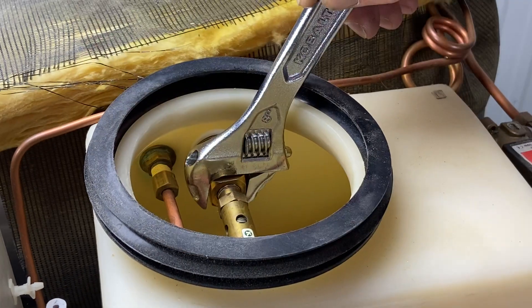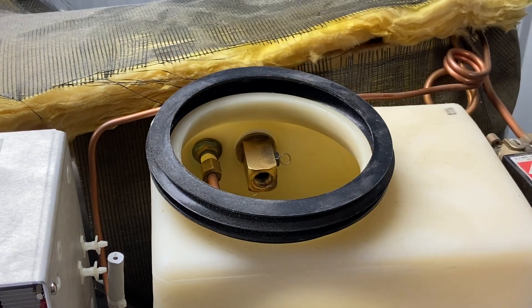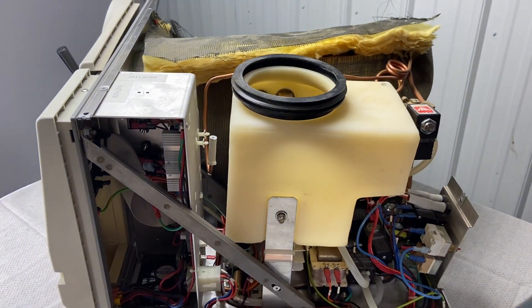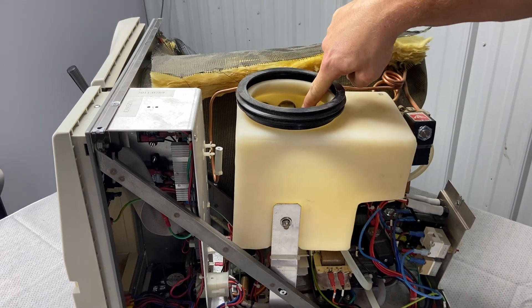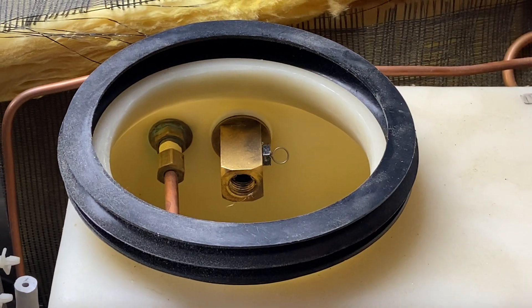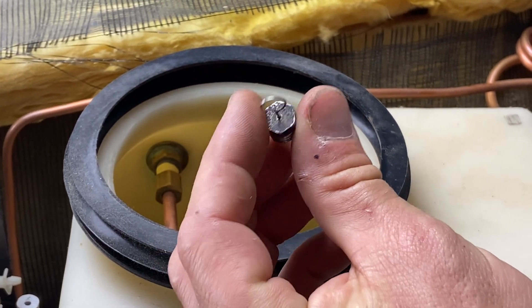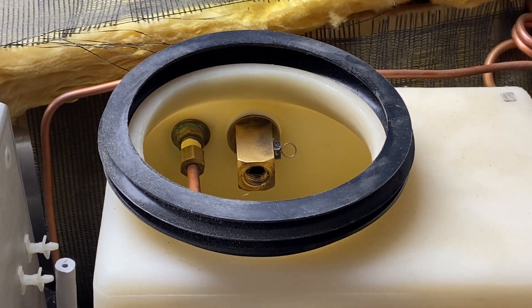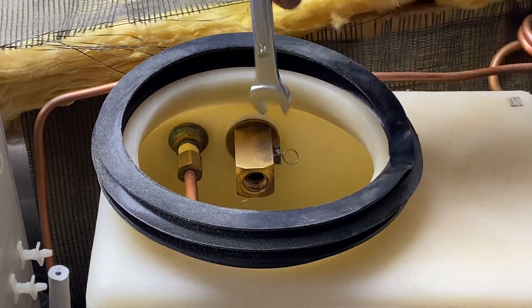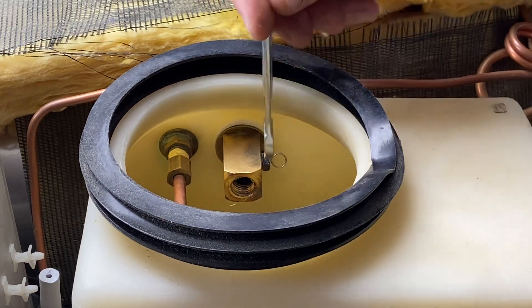Keep in mind you want to do this while the unit is cold, because all these components will be hot. Next, we're going to take off the air jet, which is right here. This is an EZ10 — the EZ10 has a black air jet. Black air jets are for all 110/115 volt models; for all 220 volt models it's going to be a red air jet. When ordering your preventative maintenance kit, be specific about the voltage — basically provide our team with the model of your unit.